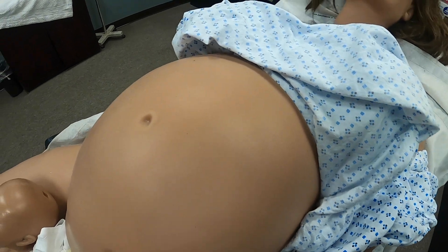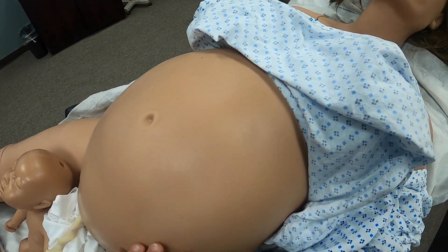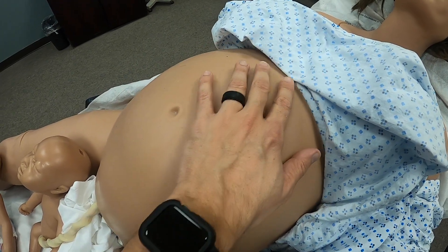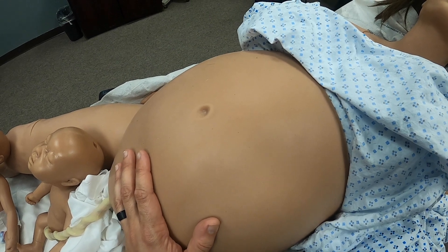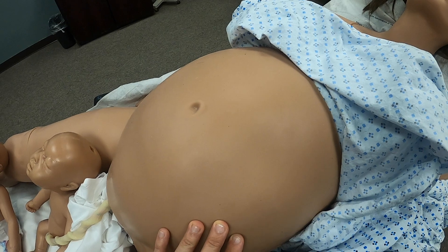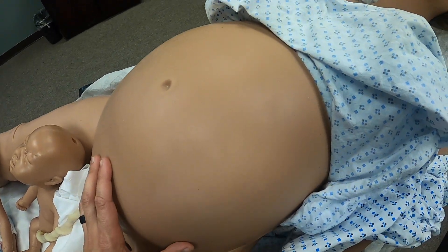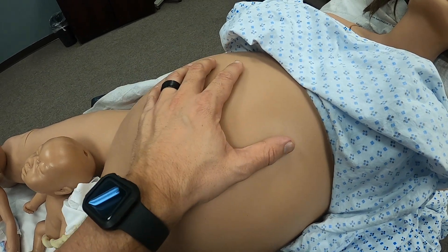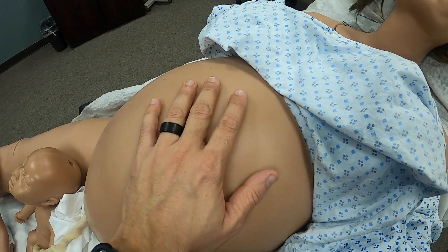The main portion of this mannequin is the actual abdomen itself. We have multiple abdominal insertions — right here is the cephalic delivery abdominal wall. We do have a normal abdominal wall that can be placed if we're just running a normal female simulation. Underneath is where the actual birthing mannequin is placed and the piston that controls how the mannequin is birthed.